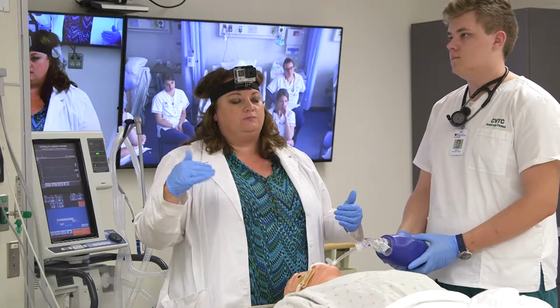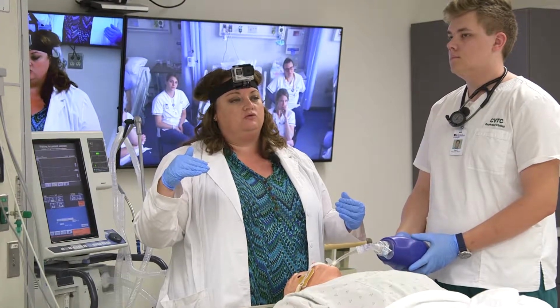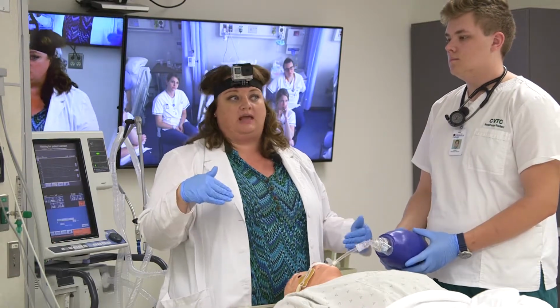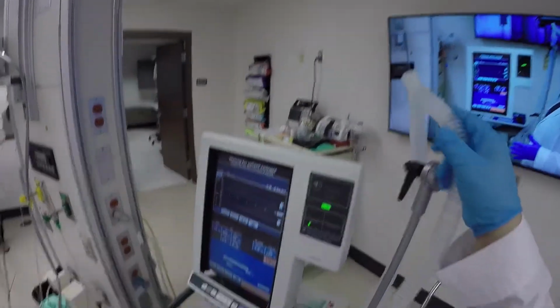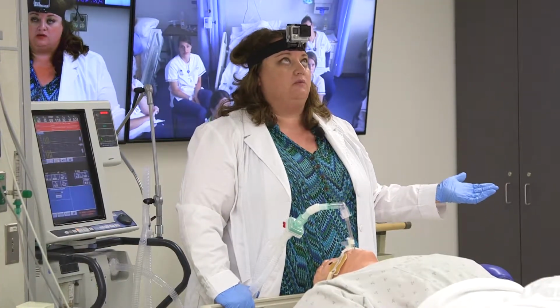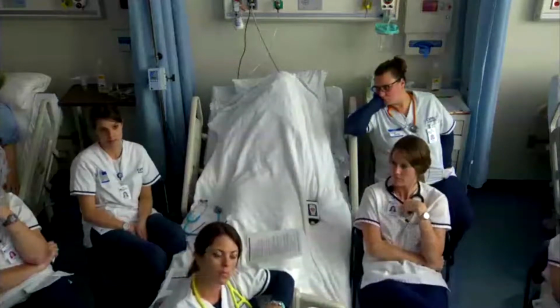So I'm going to try to turn his PEEP up a little bit when I start, because it's easier for him to not have to add more on top of that if we start him at the same level he's already at. So I'm going to start him at a little bit higher than I would normally, and I'm going to start him at 100% oxygen. Typically what we like to do is match the FiO2. So if he was getting 100% when we did this, we're going to put him right on 100% when we start. And the last thing was PEEP, so everybody remembers what PEEP is. And so I think he's at 8 right now.